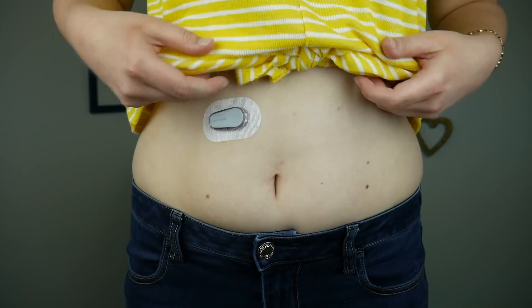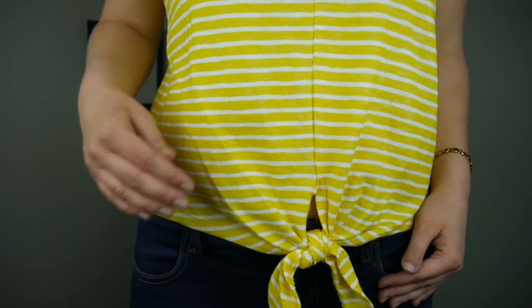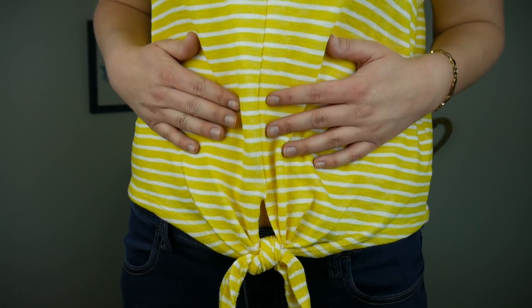And you're good to go! Oh my goodness, I love it — it's definitely so much smaller under my shirt. I'm just going to start the sensor on my phone and I'm ready to use the G6. That was definitely a way easier insertion than the G5 sensor. If you've used the G5, you know that it's kind of complicated, a little bit cumbersome.